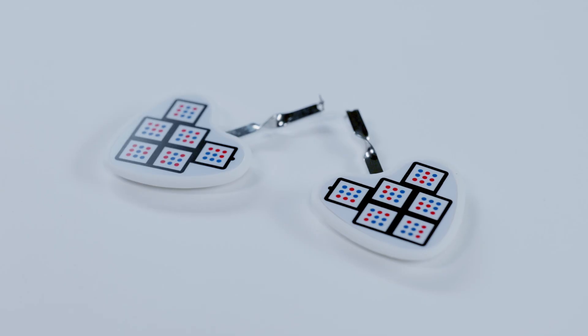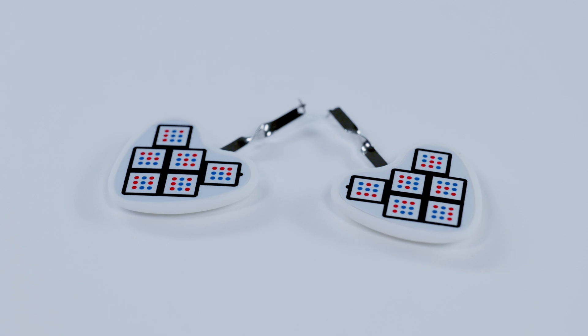We will also use side markers that are fixed to the teeth. Markers are held on special holders. Before fixing the markers, they must be assembled.